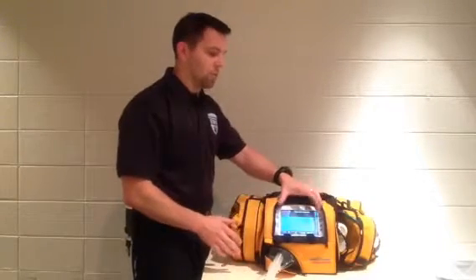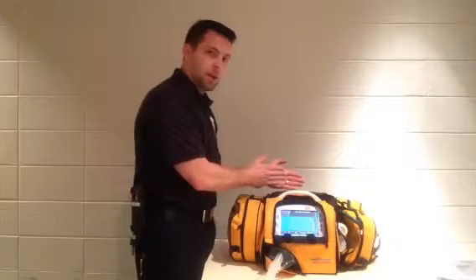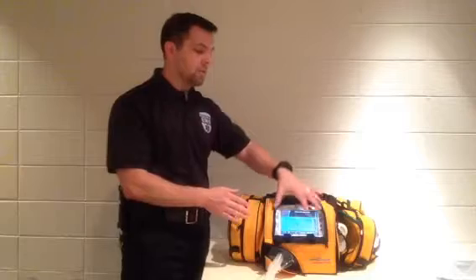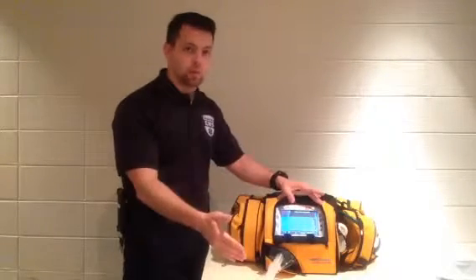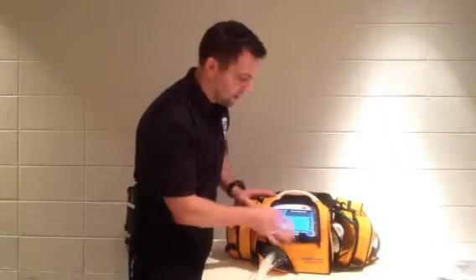So that's a nice feature too, because while you're, say, working on this with the patient, you might get 2 alarms stacked on each other. The machine's making sure that you are aware that this situation happened and this other situation happened. So it's another nice safety feature about it.